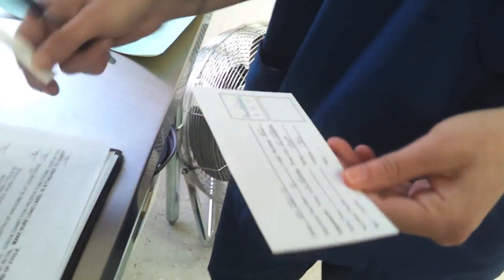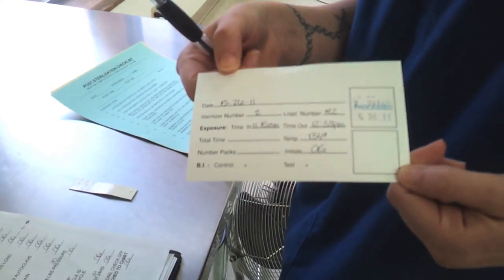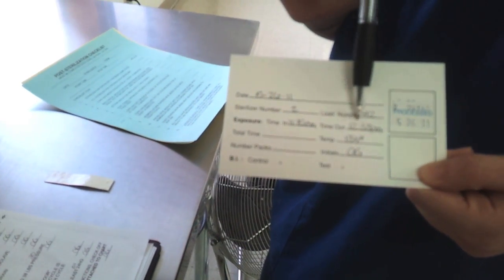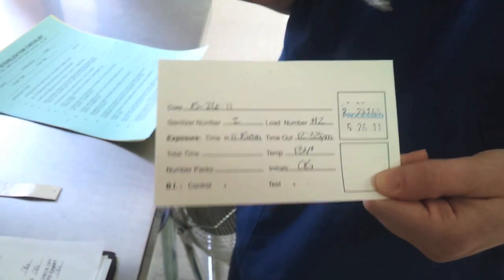And then this is your load card. Same thing as the top up here, your date, your load, your number, time, the temperature, your initials.